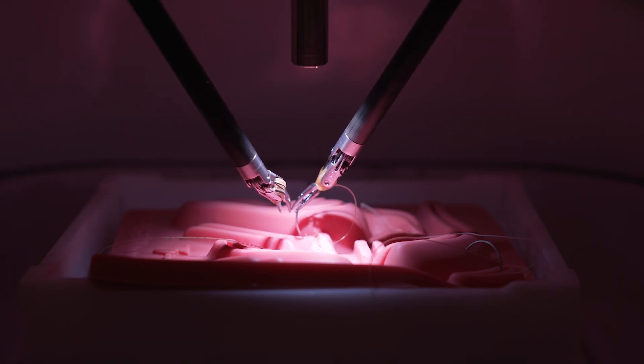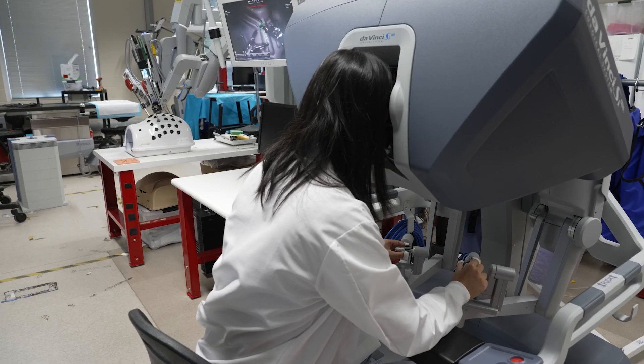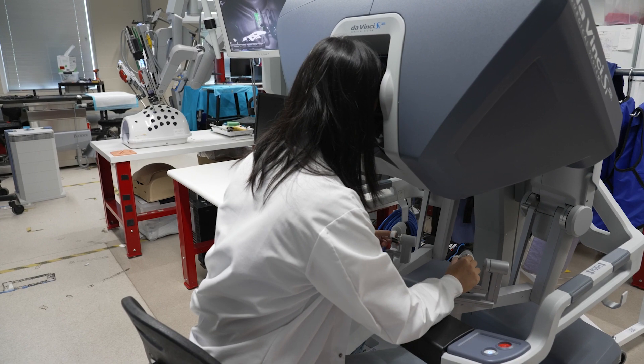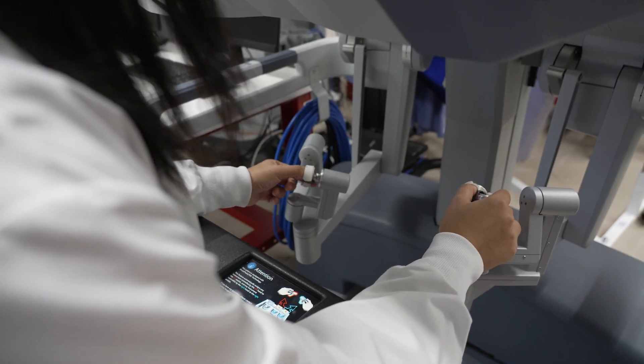Glow and Sew is a new tool that can change the effectiveness and safety of surgeries. The system works by having a glowing suture that is imaged with an infrared camera.